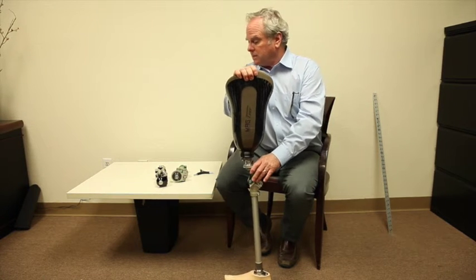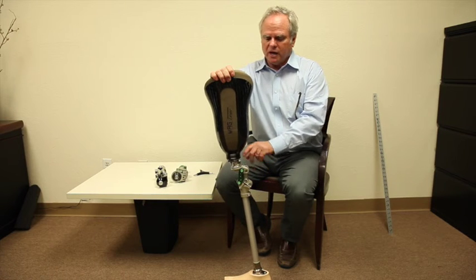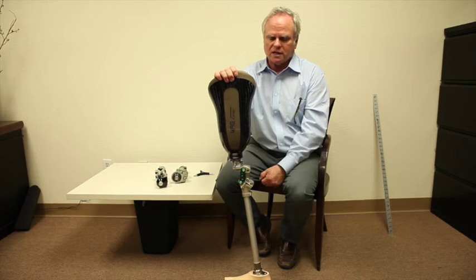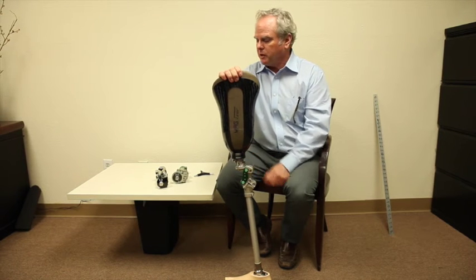This also comes in a variety of different tops. We have one that we call a lotus top for a lower profile type patient and we have the pyramid top.